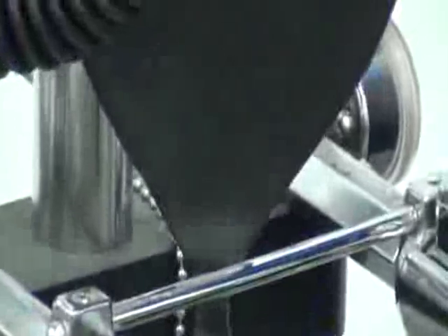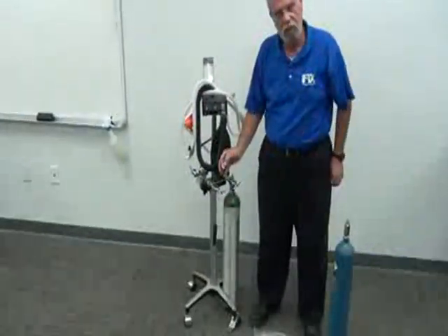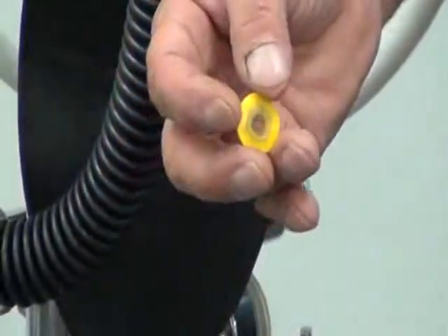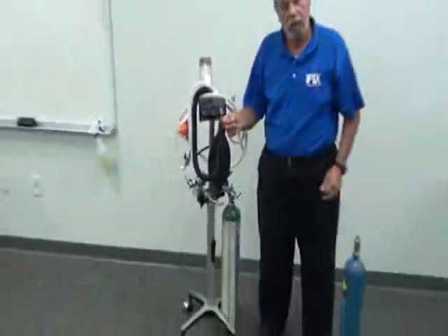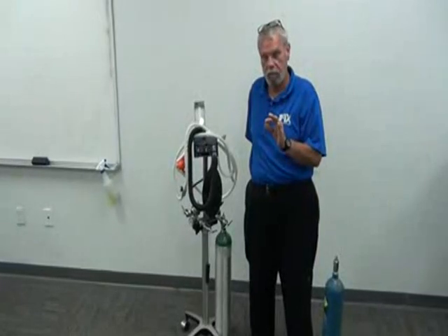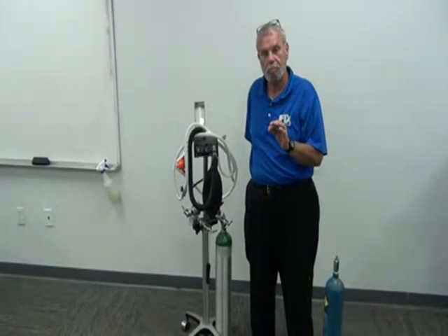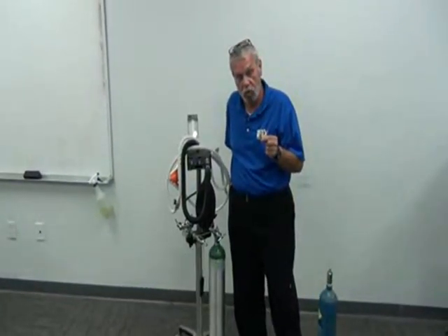There we go. Sometimes the washer is going to be a plastic disc like this. Sometimes it's going to be a metal disc with a fiber interior or a rubber interior. They all do the same thing. Remind your doctors when they have the bottled gas people, the people that deliver the gas, also have them leave washers. These washers need to be changed out every time the tanks are changed. Okay? Every time.